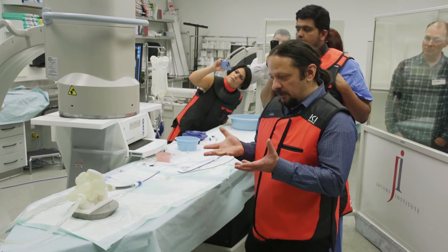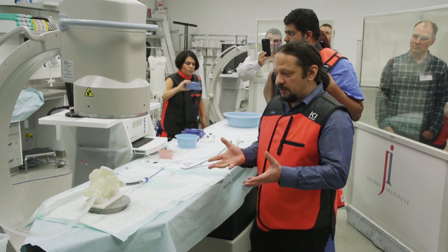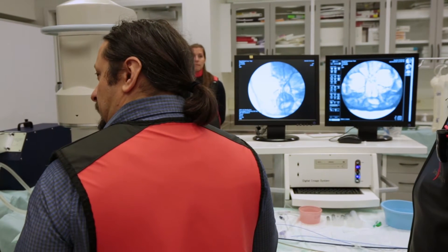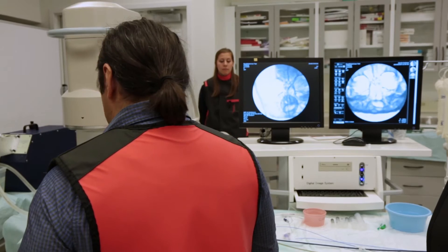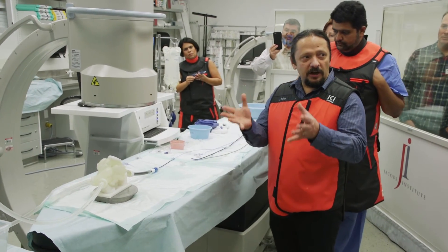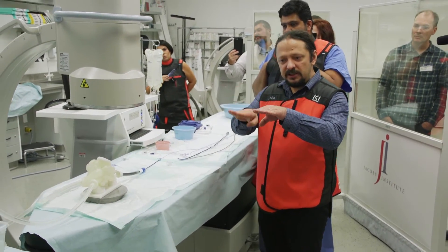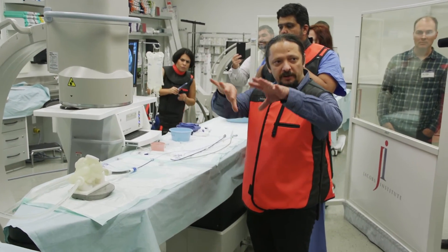That is the anatomical noise that you can get. You can't now see where is the chamber and where are the other things — you actually simulate the clinical reality of it. And that is done by taking a skull from an actual patient, matching the intensity with an aluminum thickness.